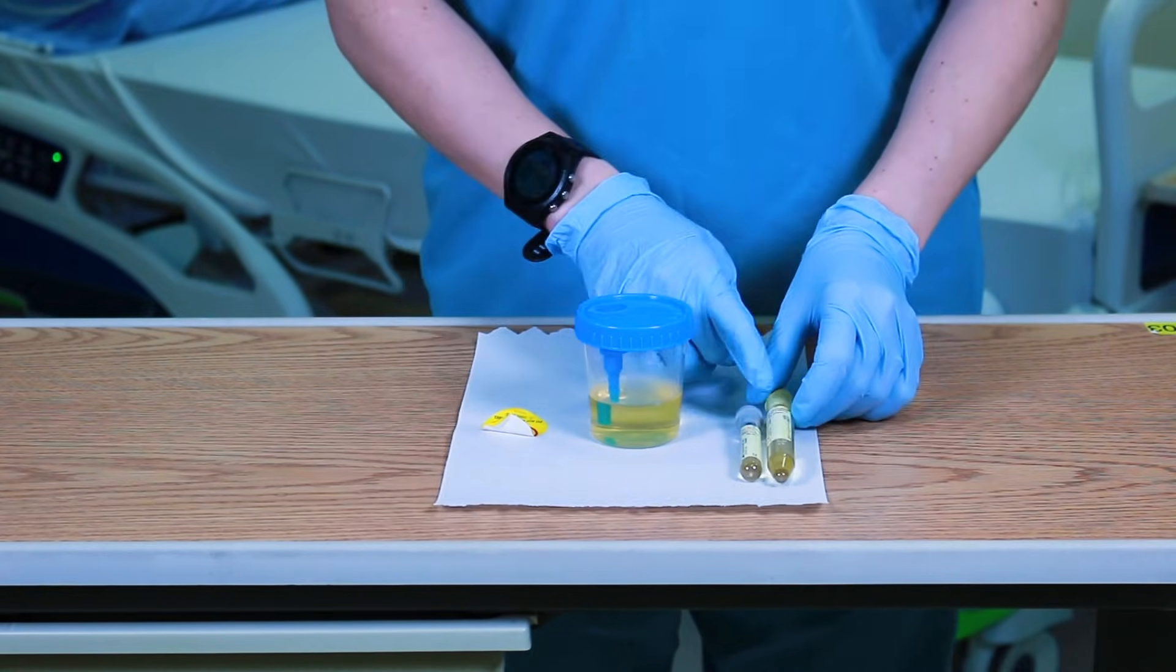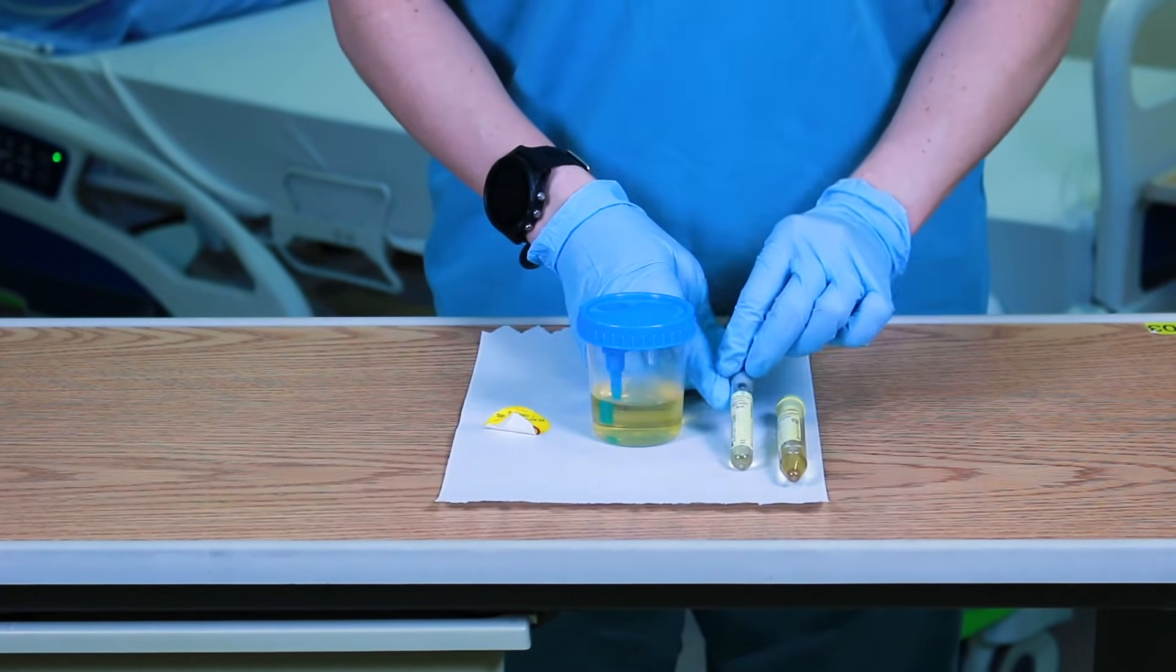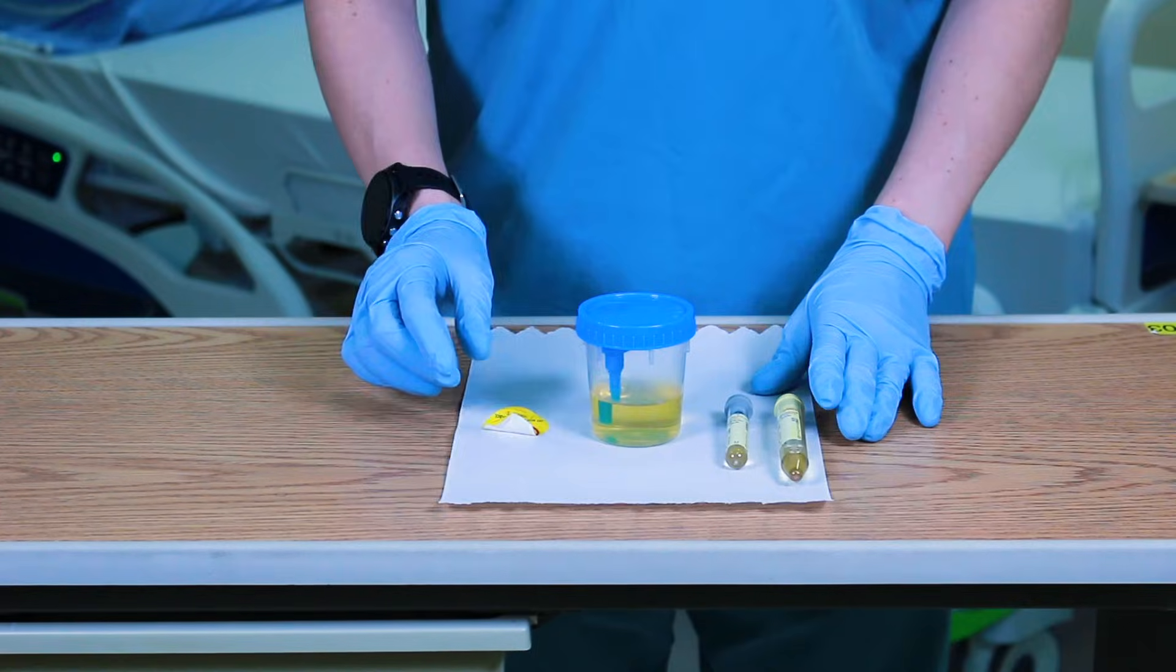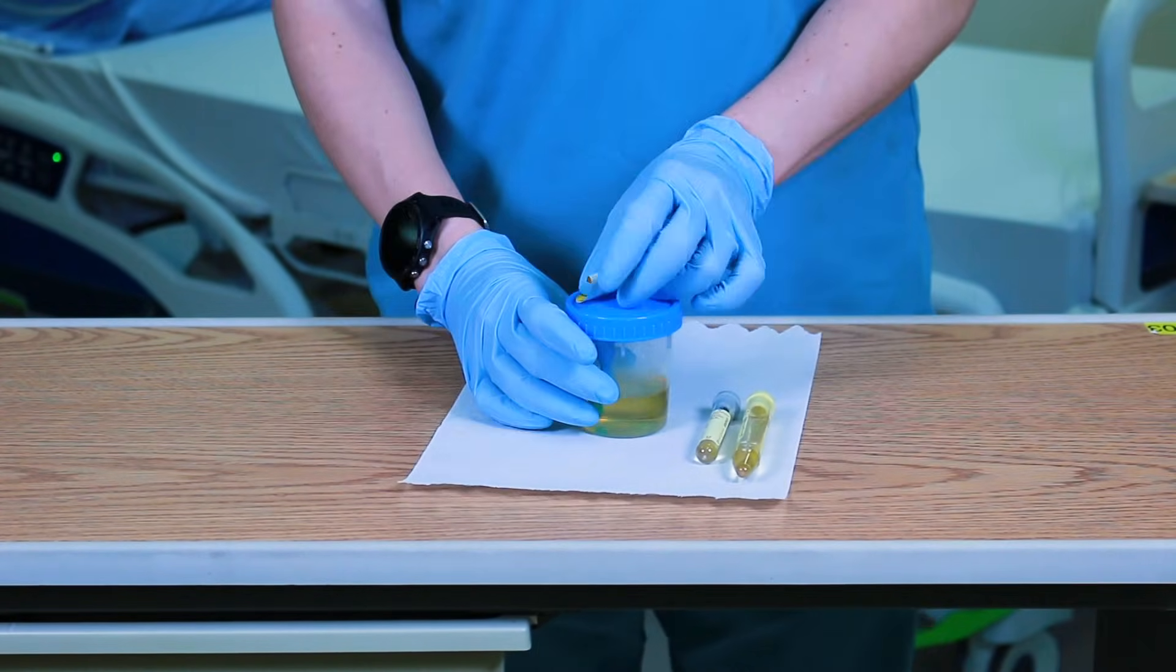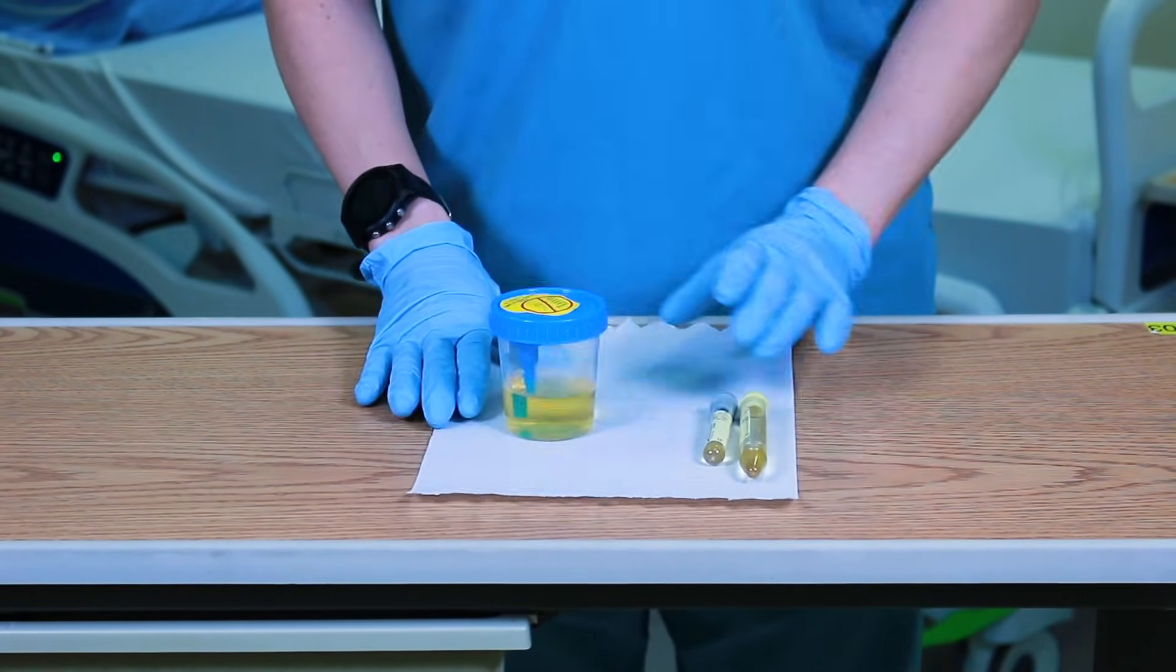Label specimen tubes with patient labels as per hospital policy. Then, apply the yellow warning label back over the transfer device and dispose of in a Sharps biohazard container.